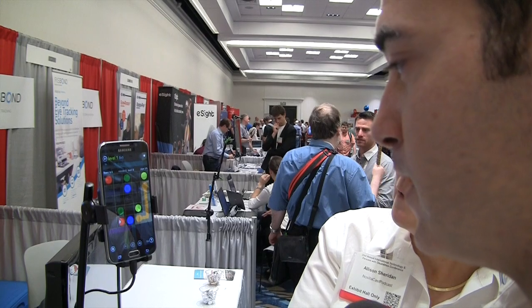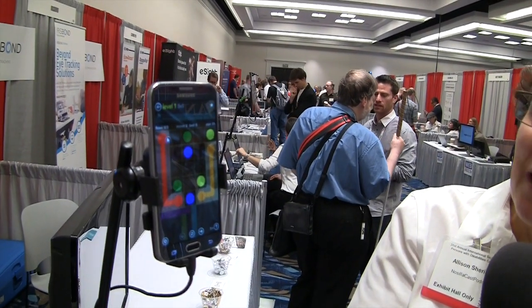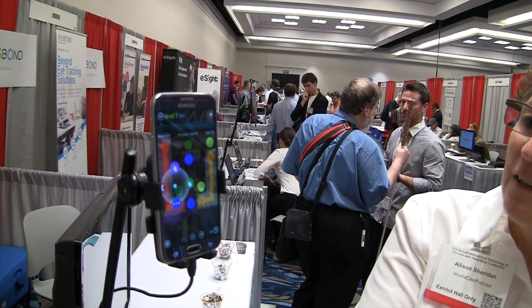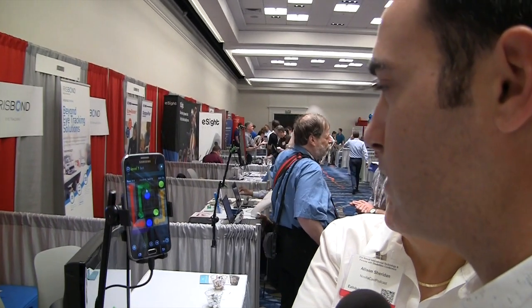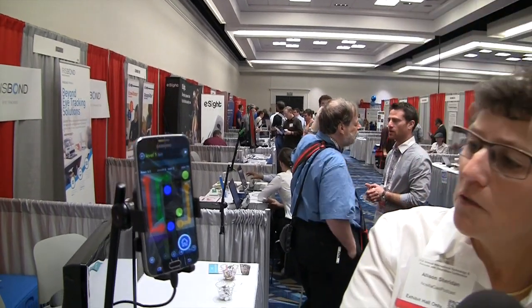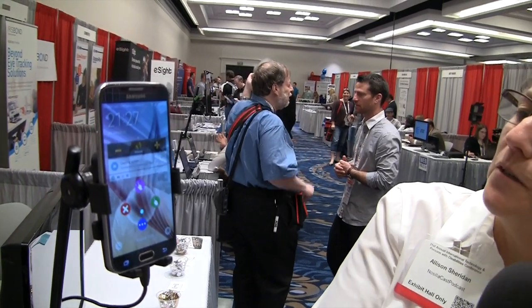He's actually playing a game right now — a dot connect game — swiping with head movements. This is just a game downloaded from the Play Store; it's not theirs. The technology works with any app you download from the Play Store. It's not just games — he's navigating to the home screen, and just by hesitating with his head pointed at the home button, the menus opened up.